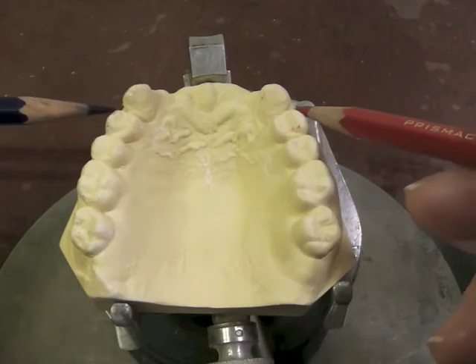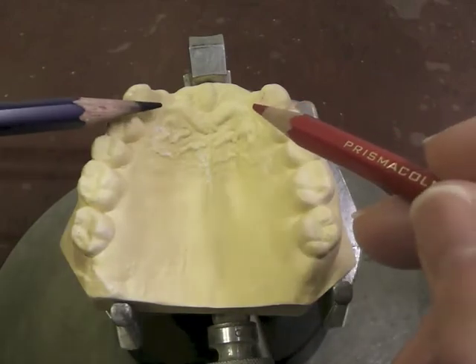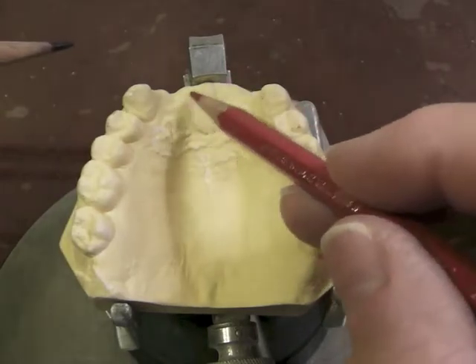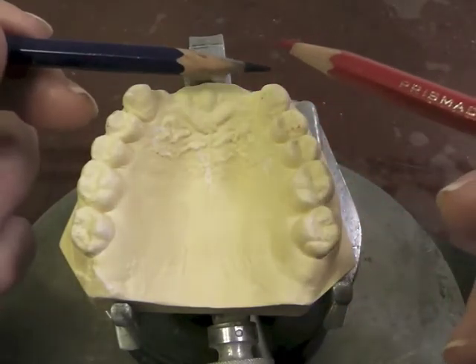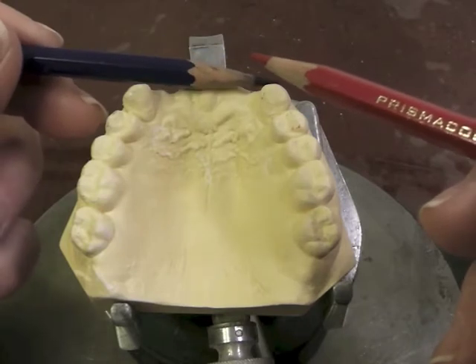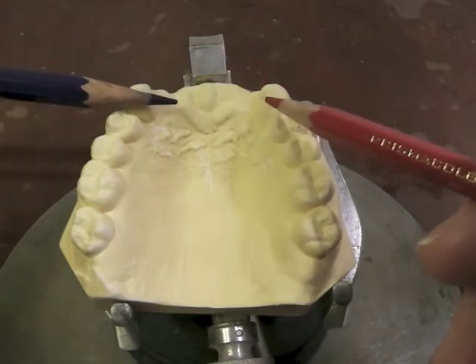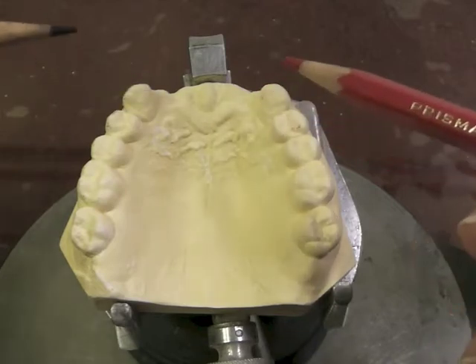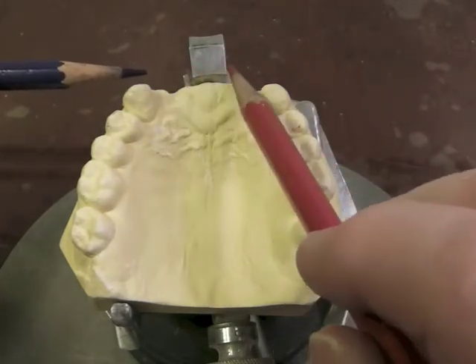If we clasp this tooth, we would want another rest next to or near our edentulous area for support in that area. When the patient bites down on something hard, we will bottom out on those teeth and support that area.